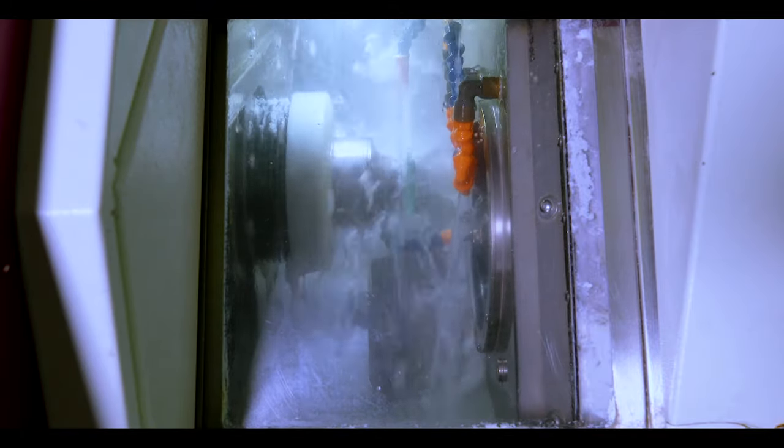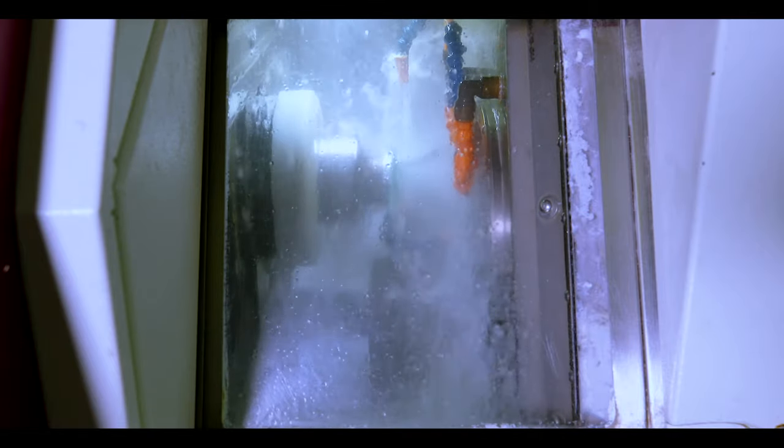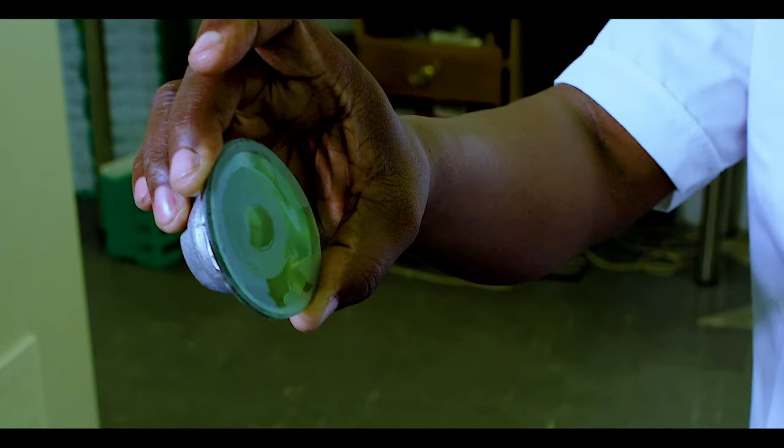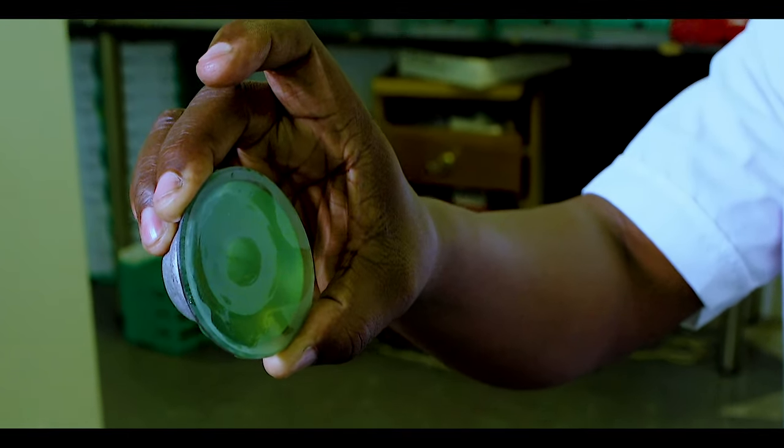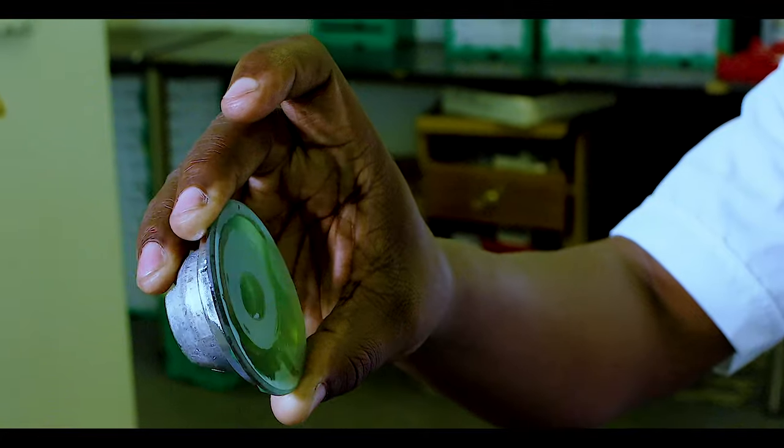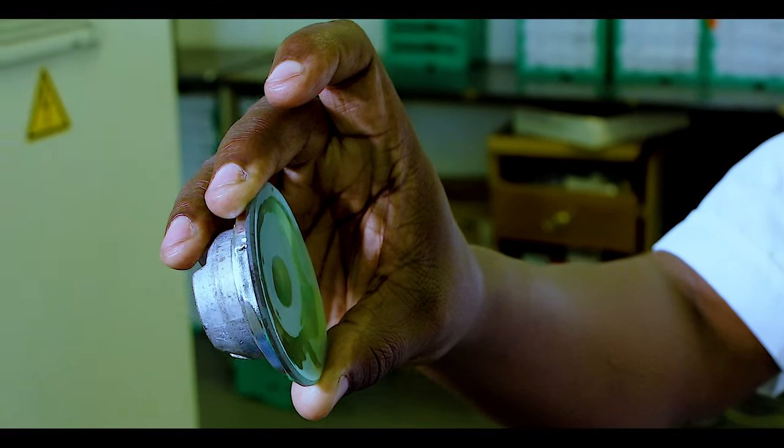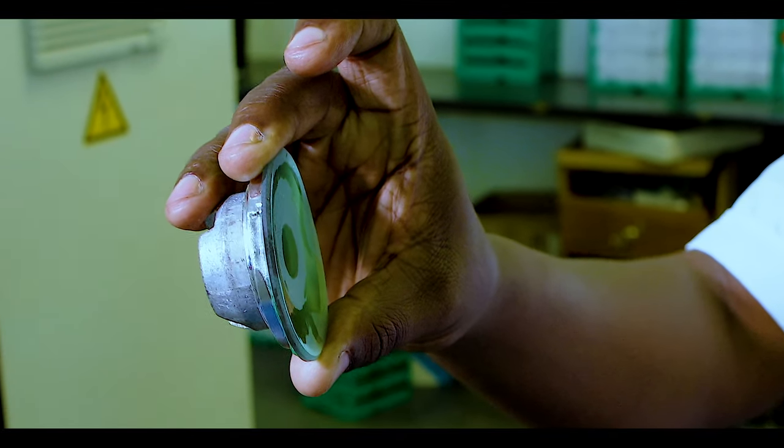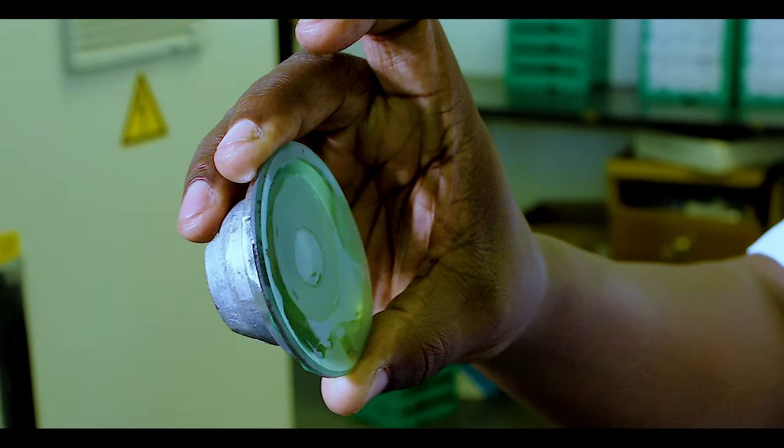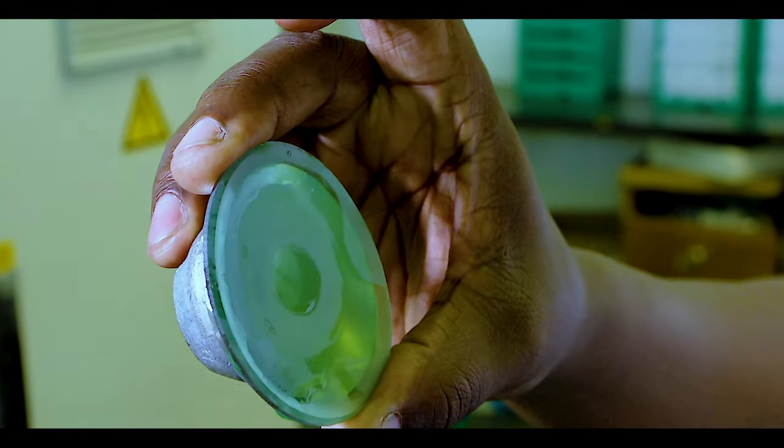Controls on the generator enable the technician to set the spherical and cylindrical curves that are required to be ground into the lens. Carbide milling cutters sweep across the lens gradually, grinding the lens until the desired thickness and curves are achieved.